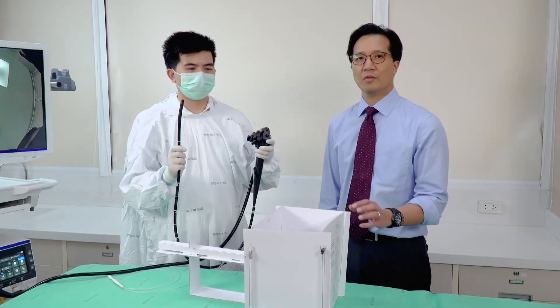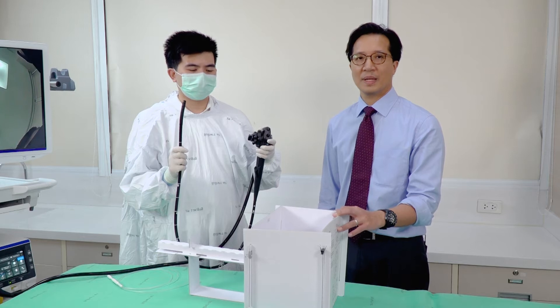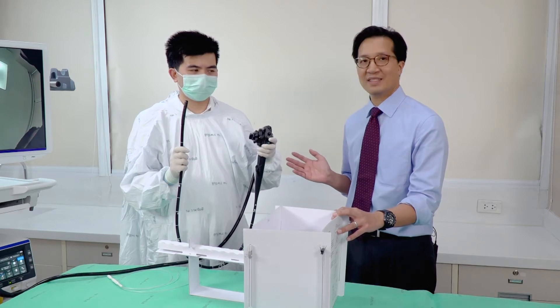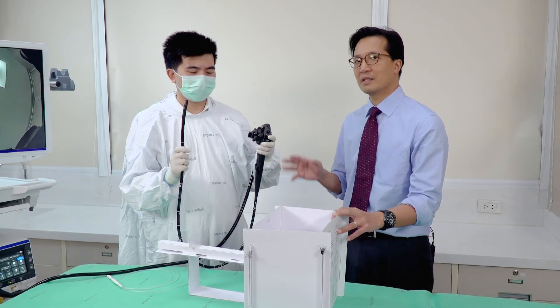I'll show you the exercises we can do with the Model One endoscopic manipulation trainer. I have here my first year fellow Tanah Wat to help me demonstrate. Firstly, before we get into the exercises, we need to make sure that the trainee holds the scope correctly.